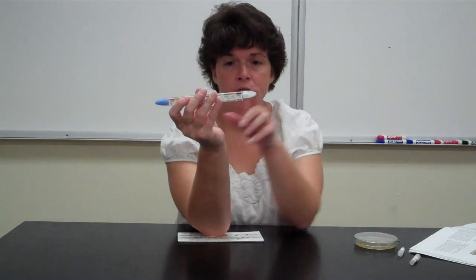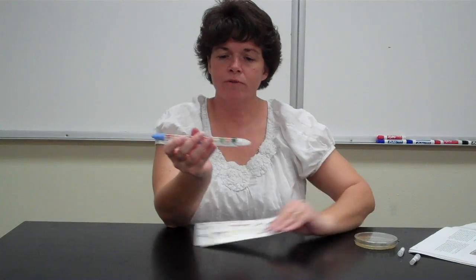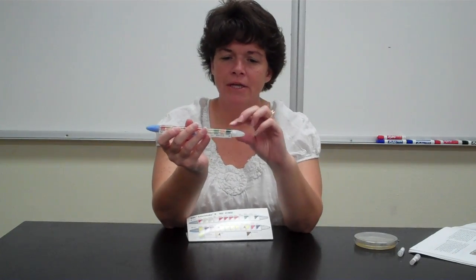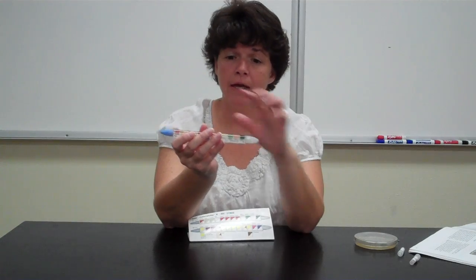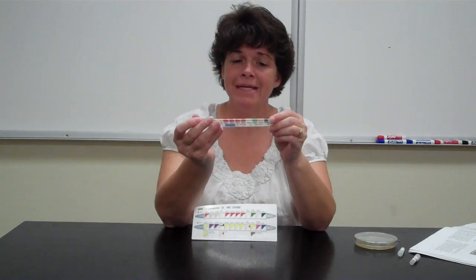And then for the urea, it shows pink here. And remember, that was that hot fuchsia pink. So if it goes from this orange to hot fuchsia, and then the citrate we haven't done yet, but if it uses citrate as its source of carbon, this will turn blue, okay? So you might have them all change, you may have some change and not others, and that means something.